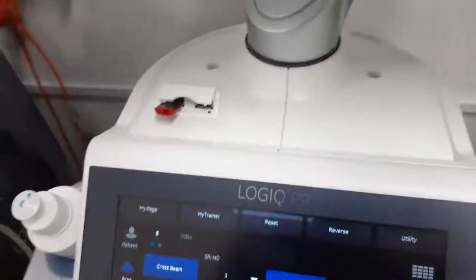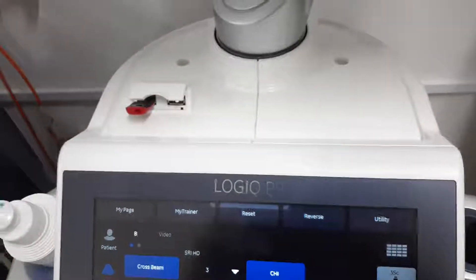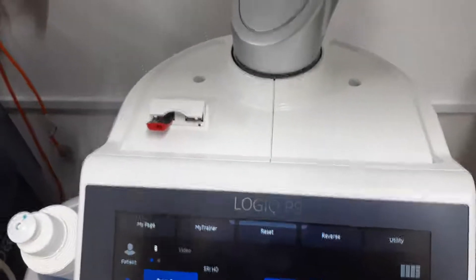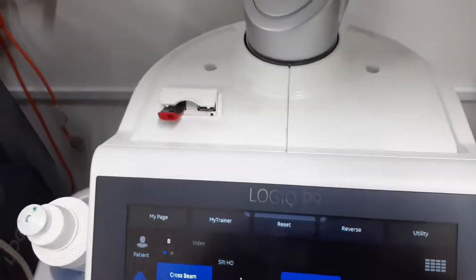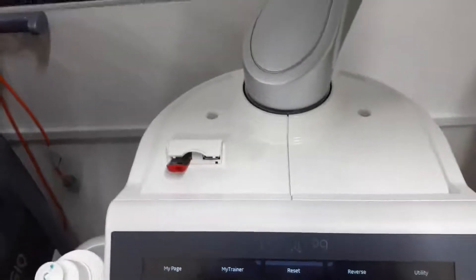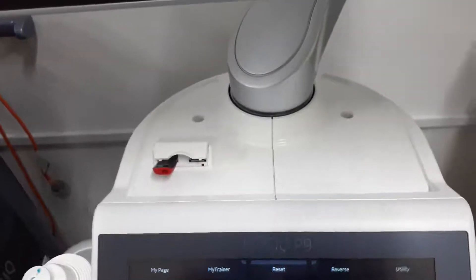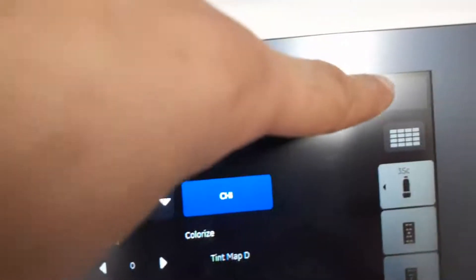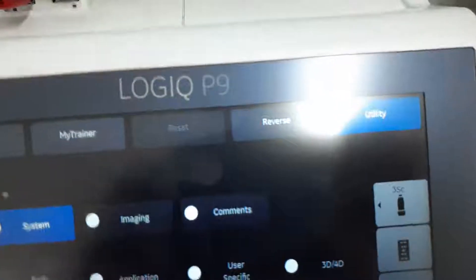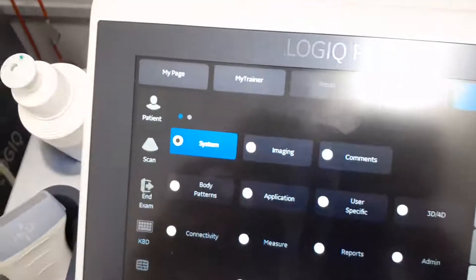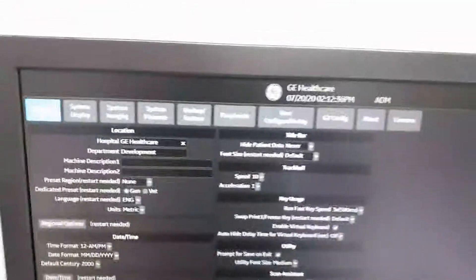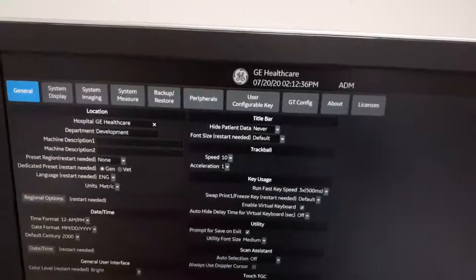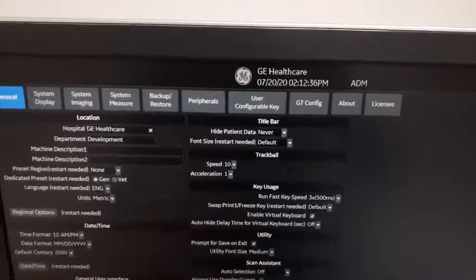To export user configurations — like imaging presets, measurements, and other presets — to external memory, external hard drive, or CD, go to Utility on the touchscreen, then from that screen go to Backup and Restore.